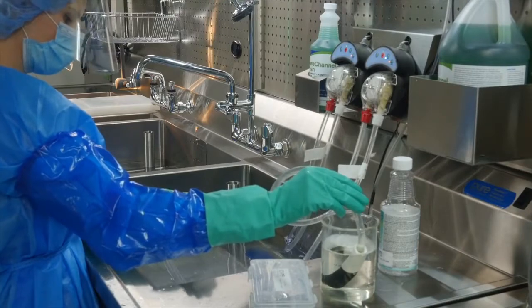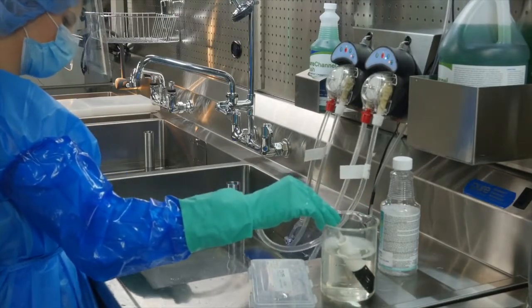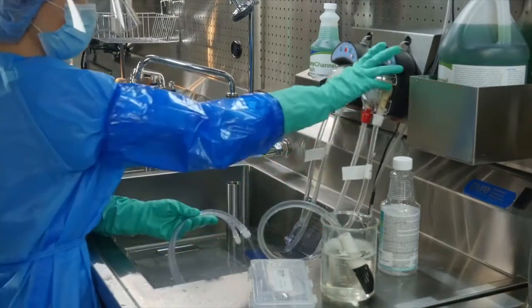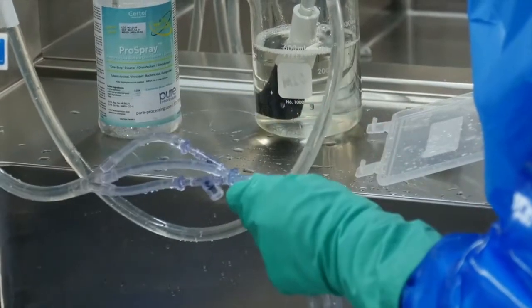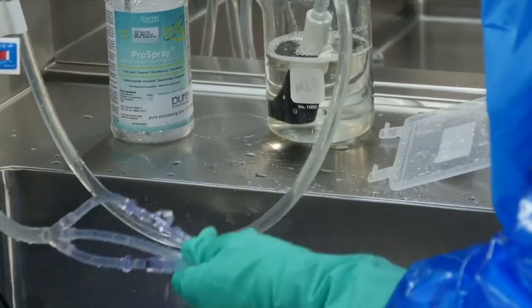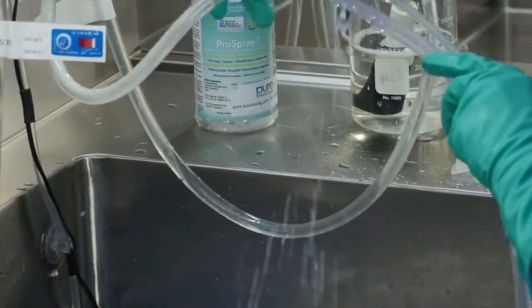Remove any end caps. Press the forward flush to begin filling the tubes with disinfectant. Cap off the tube leads once disinfectant ejects from the leads and run the pump for another 2-3 seconds.